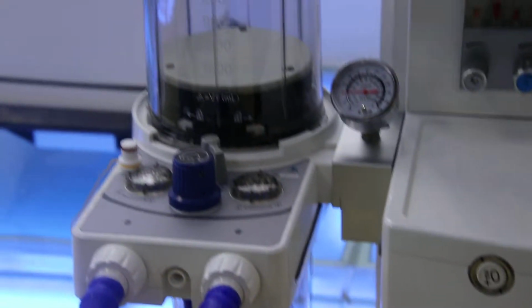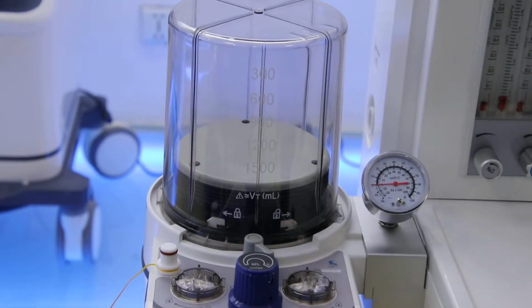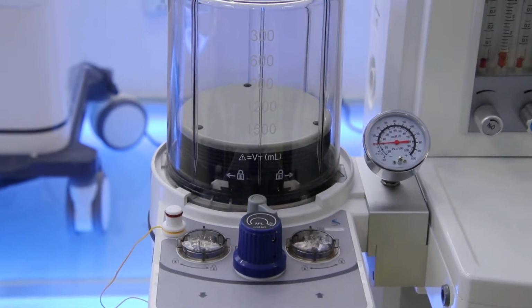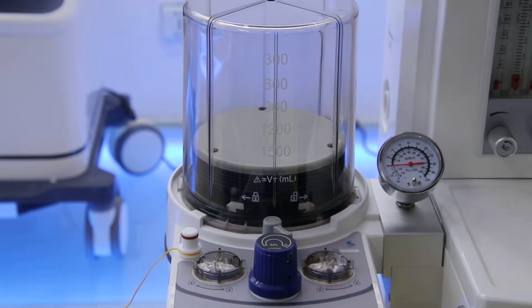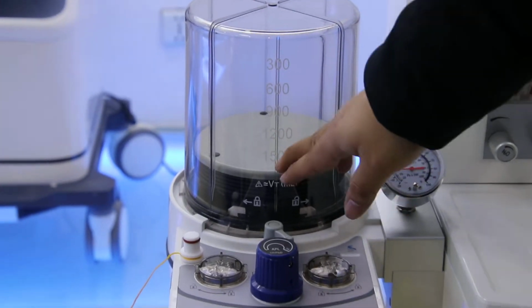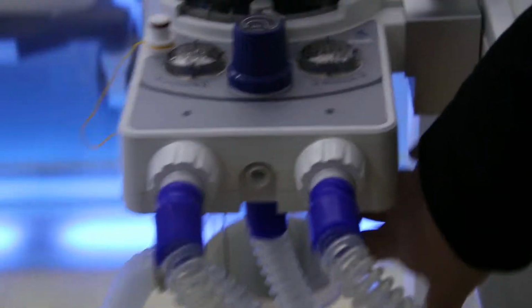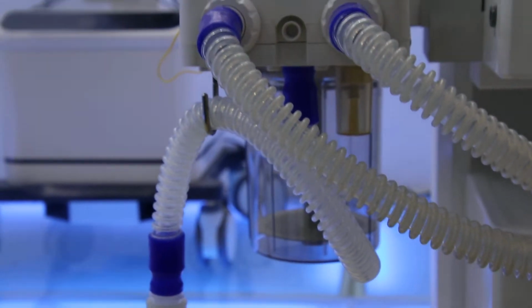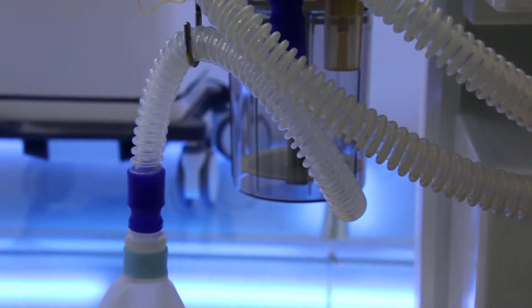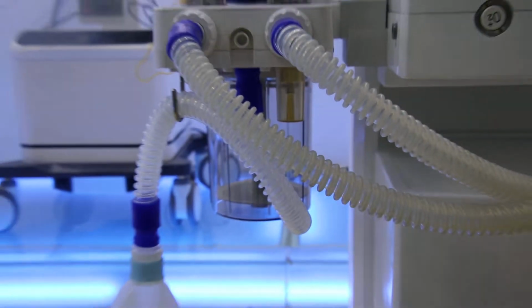And now let's see the patient circuit. Here for this bellows, as I mentioned, our machine can be used from neonatal, about 2 kg, to adult. So this bellows you can see is also from 20 to 1,500 milliliters. And for the carbon dioxide, this below side has the container. It can hold a total of 1.5 liters of carbon dioxide absorbent, and you can use different types to keep the water dry.